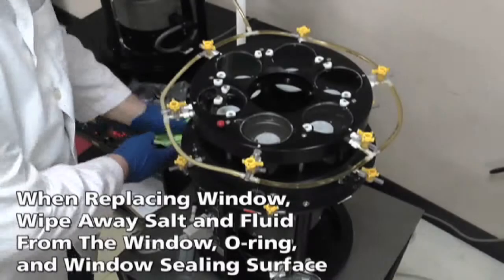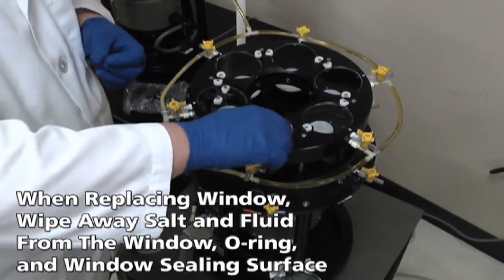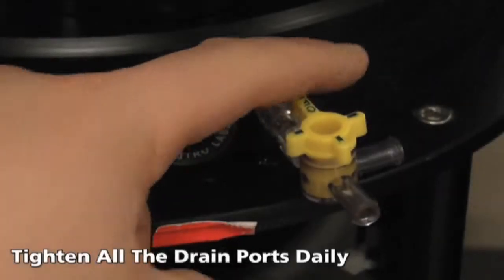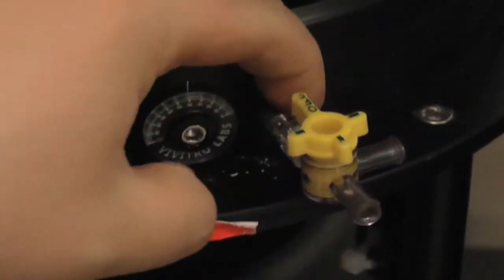When you are putting a window back on, wipe any salt and fluid from the edges of the window and O-ring, as well as the window sealing surface. Check that all of the drain ports and stopcocks are tightened daily. If these come loose, they can allow air into the system.